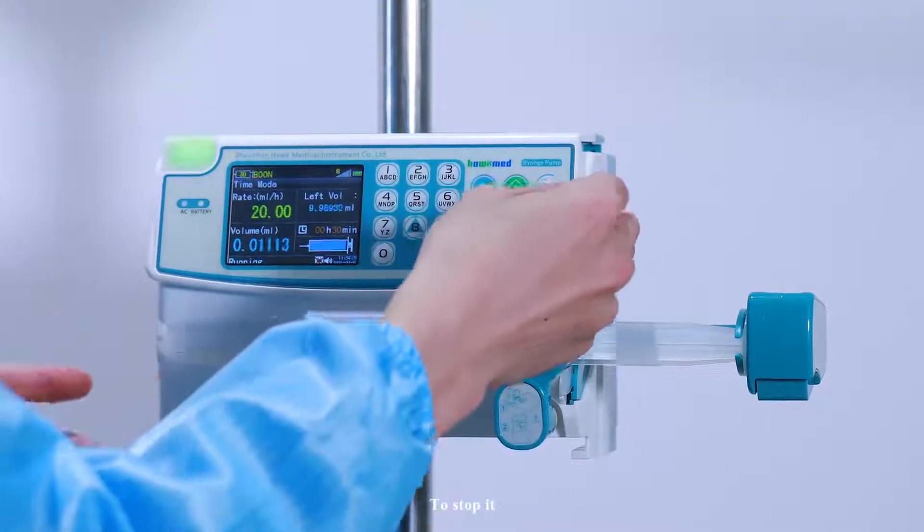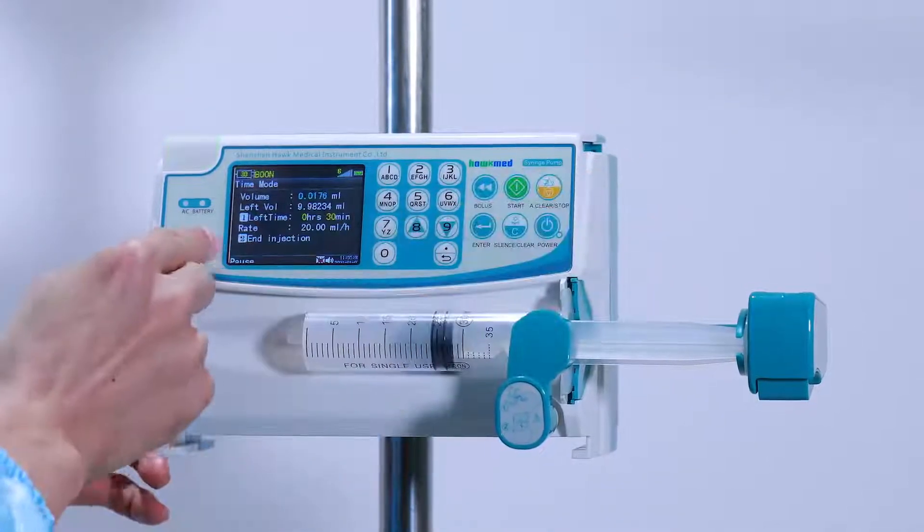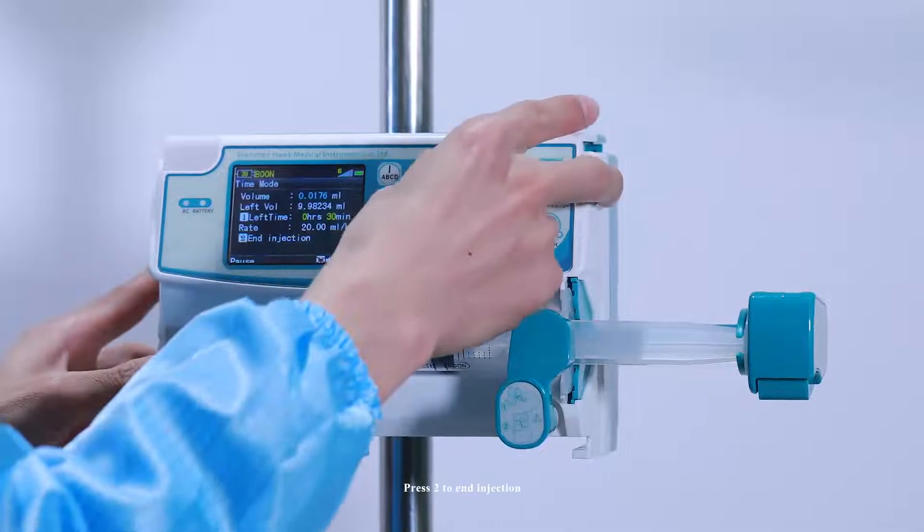To stop it, press stop. Press 2 to end injection.